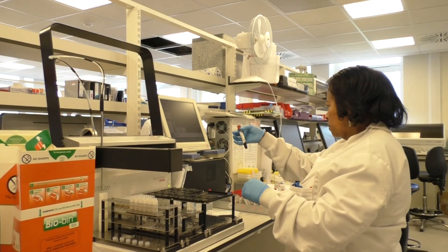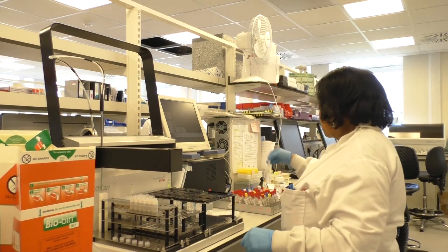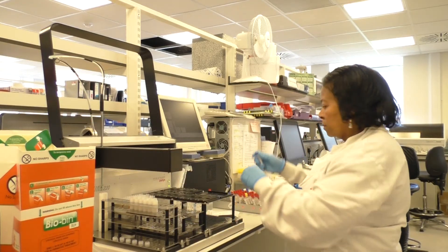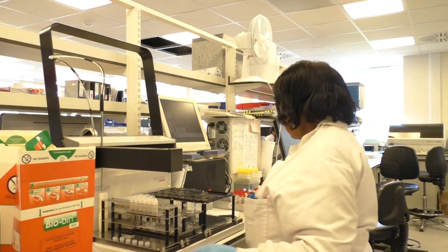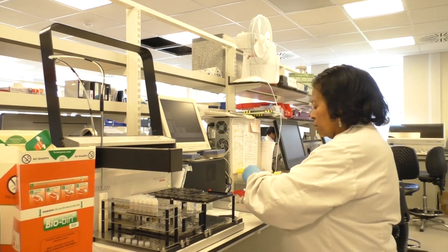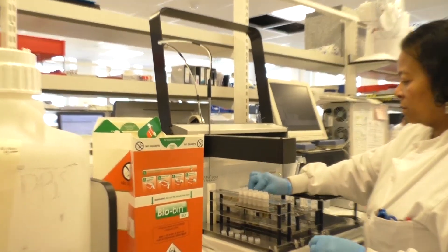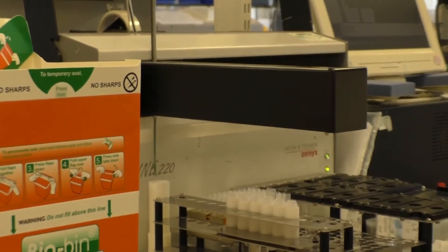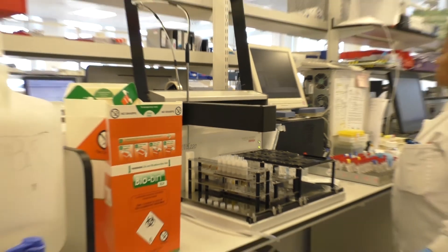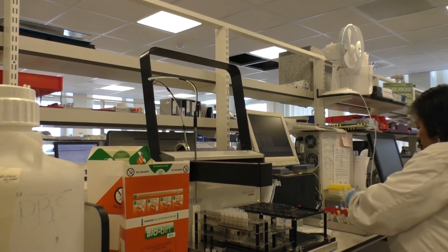The patient samples are loaded onto a dilution rack from which the machine will pick them up, and then take an aliquot of each sample in turn and dilute them with the phosphate buffered saline in the dilution tubes. It will then pick up an aliquot from the diluted patient sample and dispense it onto the slides. This process is automated.